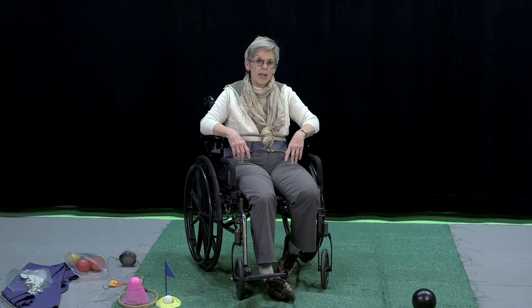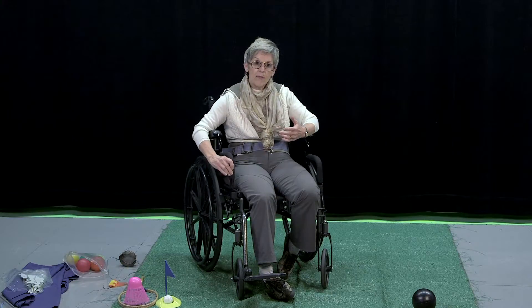Now that we're in our wheelchair, remember what I said in the beginning: you should not limit yourself by what your body can do, but creatively use the equipment that you have. So one of the first things I'm going to do so that I can play and move around in this wheelchair a lot better is I'm going to lift this up so I have flexibility.